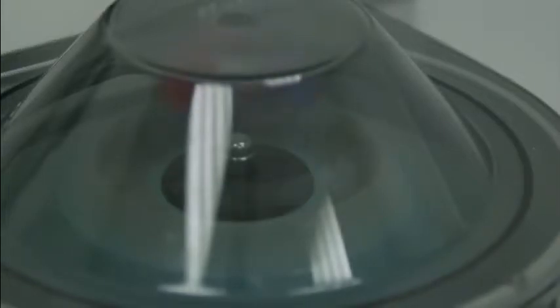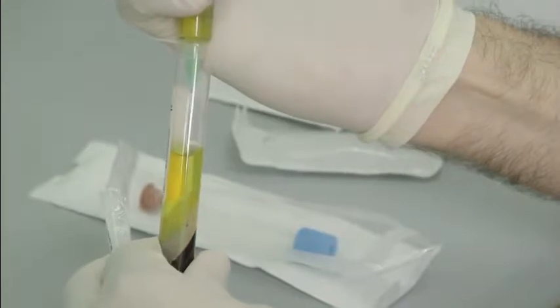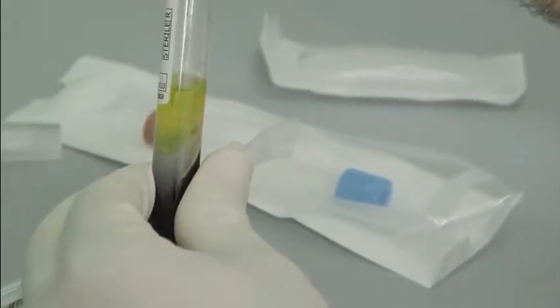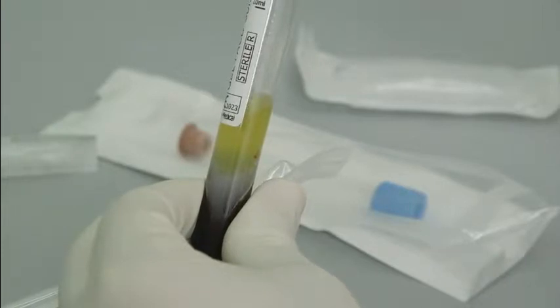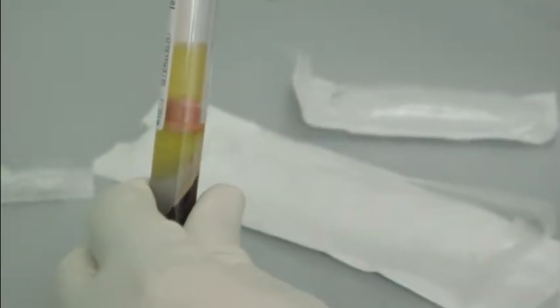On removal from the centrifuge, the area above the gel contains serum and the activated platelet clusters. The majority of serum is removed so that platelet concentration is increased. The platelets are then re-suspended, or re-added, to the plasma by mixing the solution. All of this procedure is performed in a negative pressure fume chamber to ensure safety.